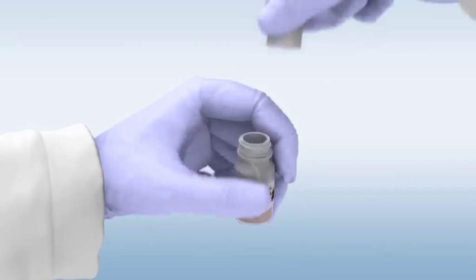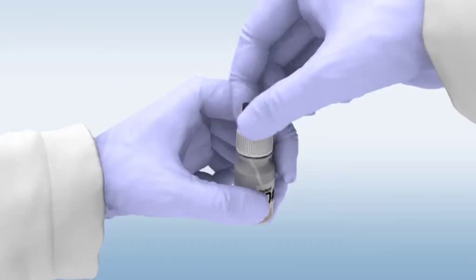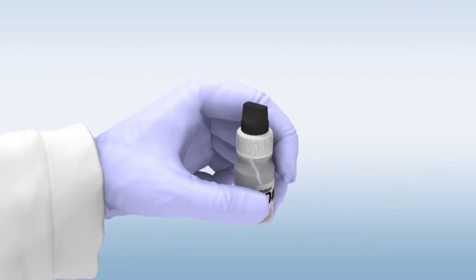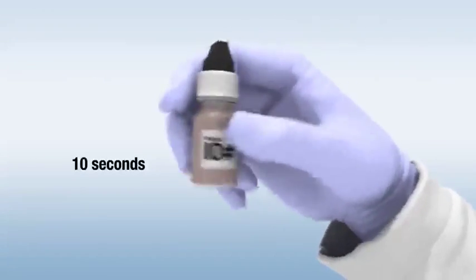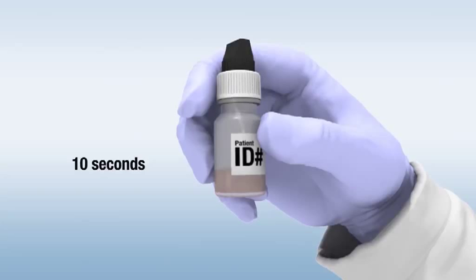Place the white cap with the upper black cap back onto the sample tainer containing the loop tip. After securing the cap tightly, gently shake the bottle back and forth for 10 seconds. Remember to mark the bottle with a sample ID.